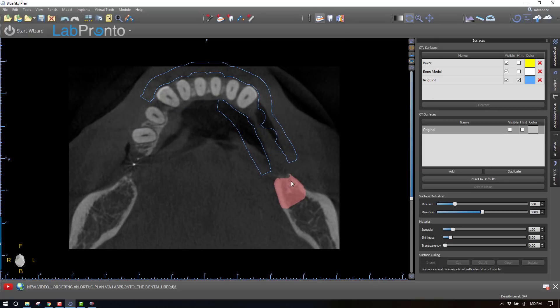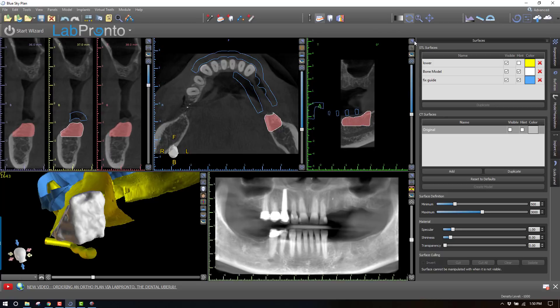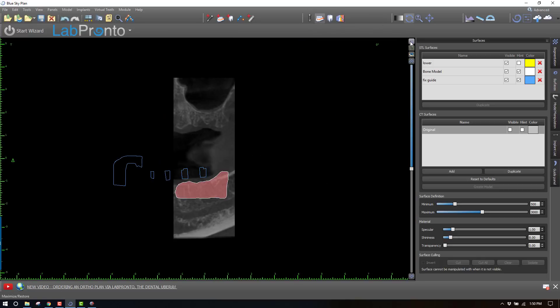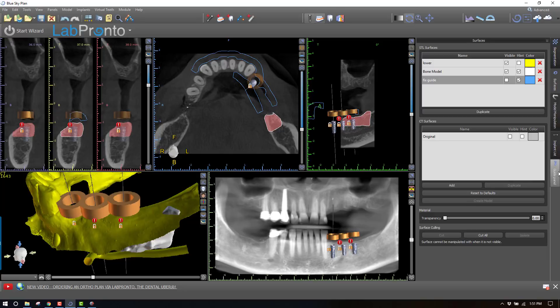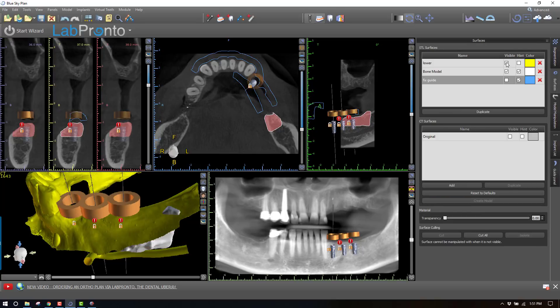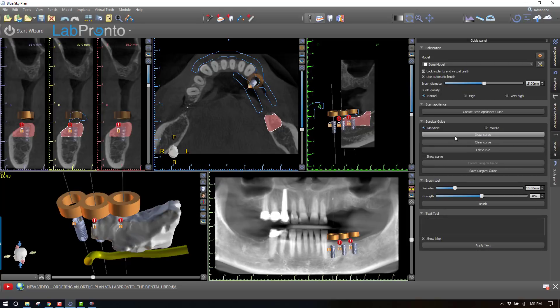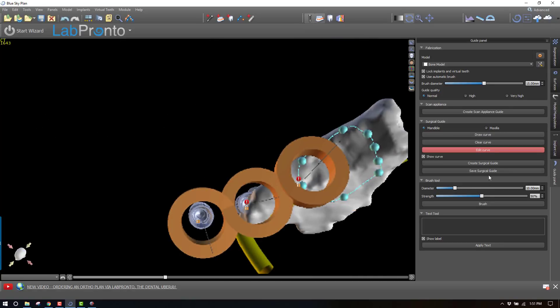I'm basically going to create a bony stop right in this area — a super small guide. That looks great. So let's go back, turn on the implants, hide this guide, and create a new surgical guide. We're going to build it onto the bone surface — Normal quality on the mandible. Let's draw the curve. We're just going to include maybe that much — very small. Edit the curve. That looks good. Create the surgical guide.